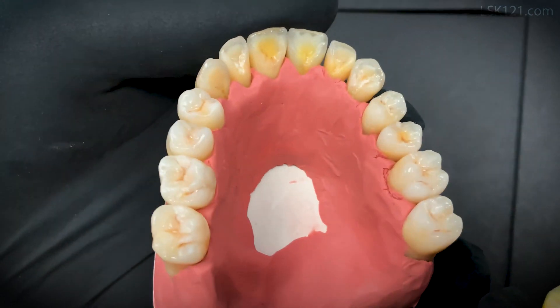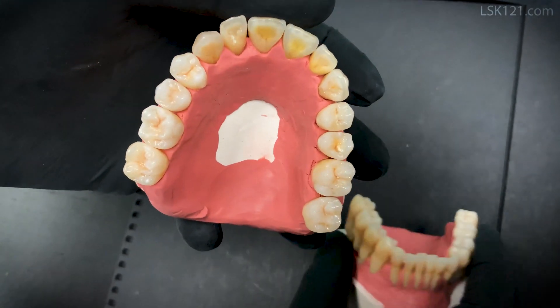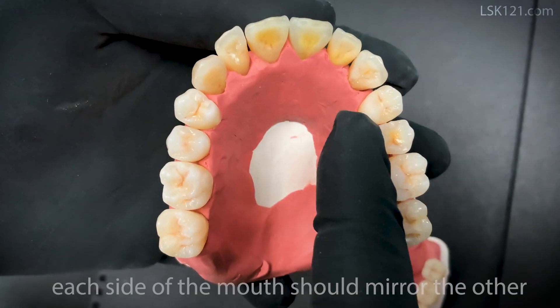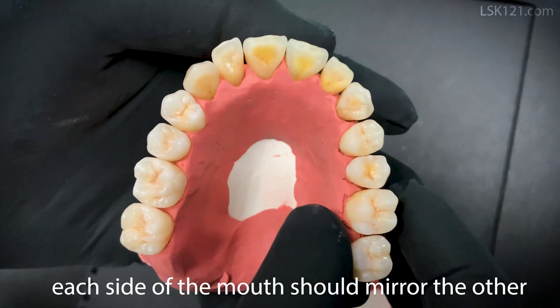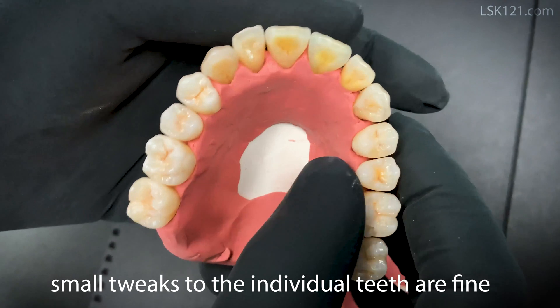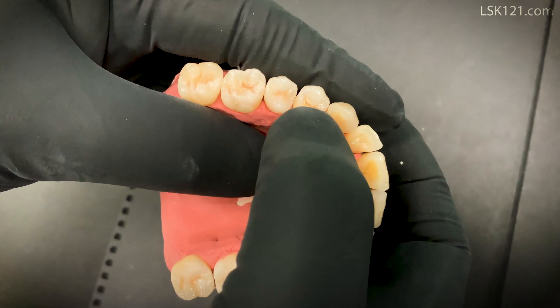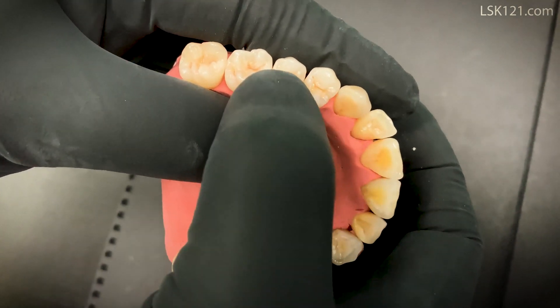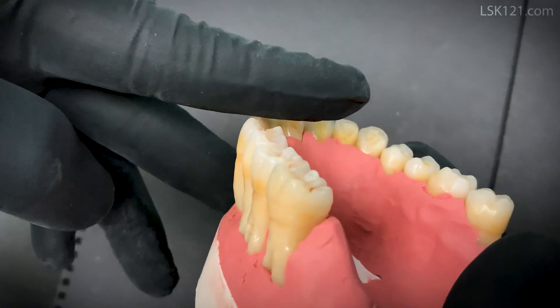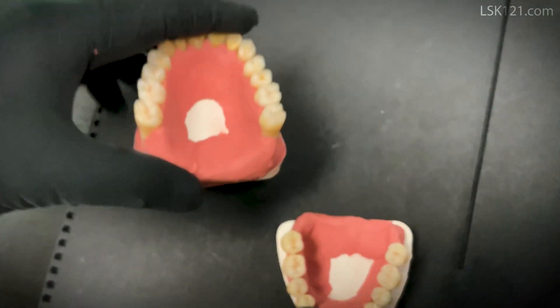See the single unit. Now we're talking about the posterior upper teeth — when you section the tooth in half and look at the mirror image. A little tweak is fine. Here you can see the image where one cusp is larger and the other is smaller. When you look horizontally it's fine — it's almost the same degree compared to the lower.